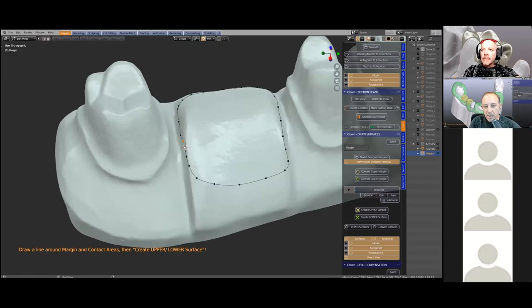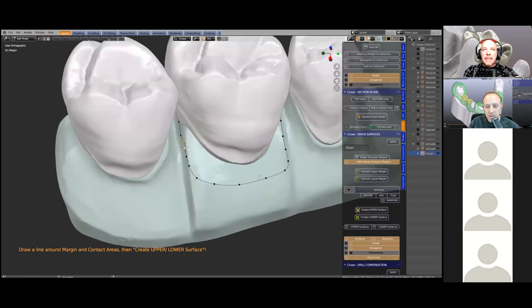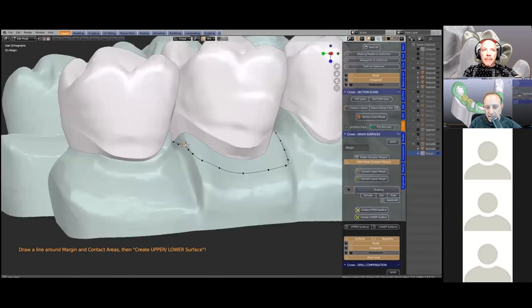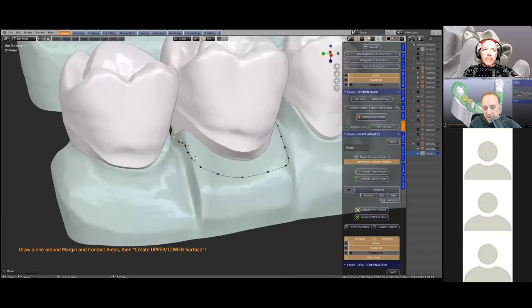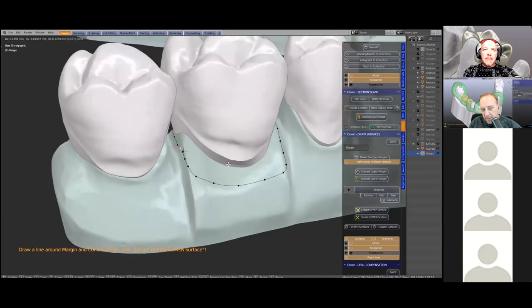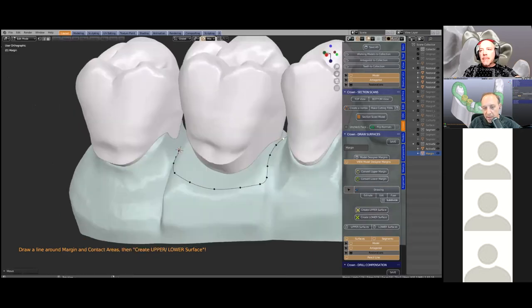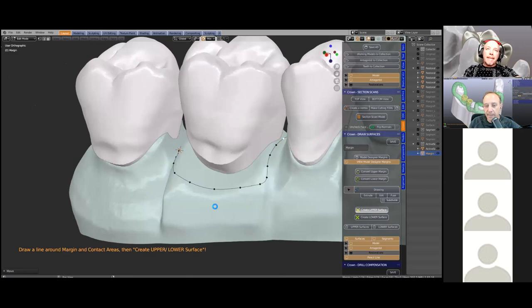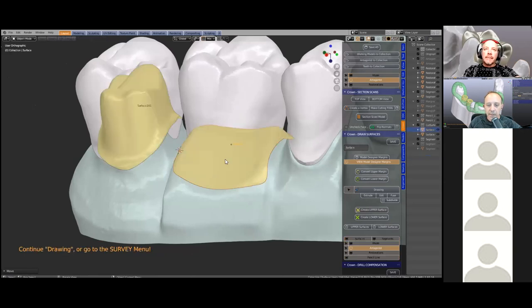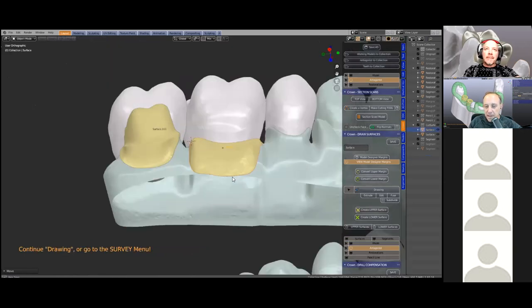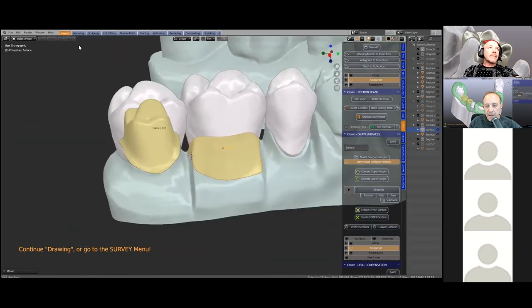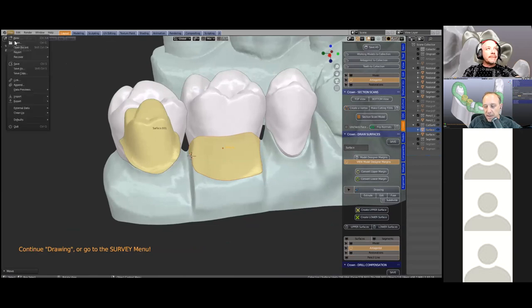This outline is quite overly large because we want to make sure it'll be used as a cutting tool later on. He's moving the outline a little bit lower to make sure the full contour of the tooth library sits on the gum. This creates another surface, and lastly he'll do the other one.